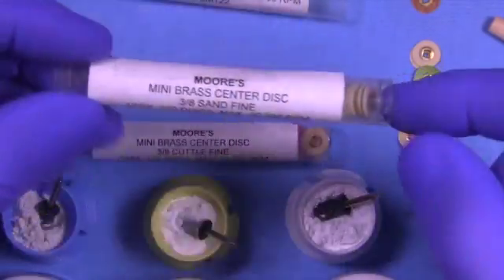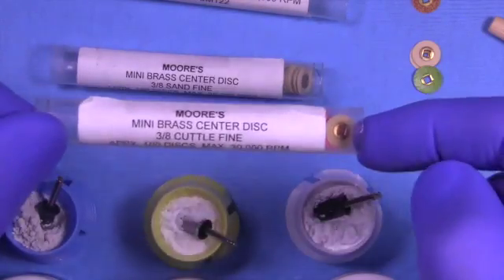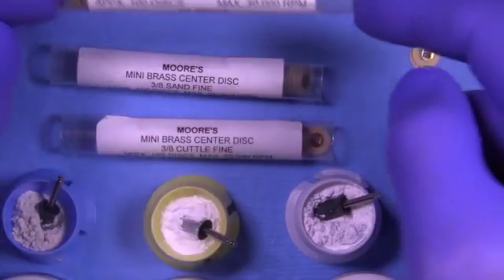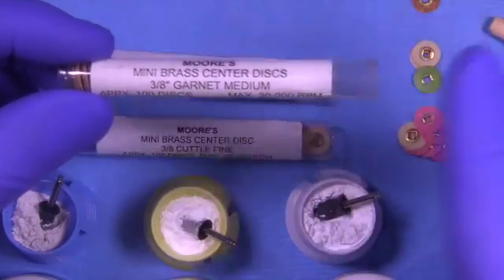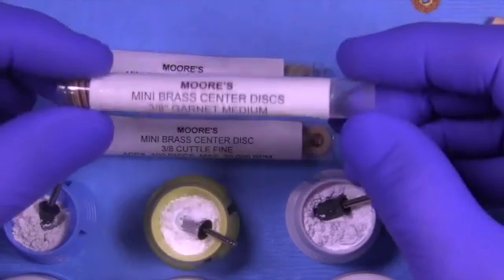Be prepared to be reaching over either to your digital interface for your electric handpieces or right on the handpiece itself for your air turbine style, changing directions to make sure you're always abiding by that principle.